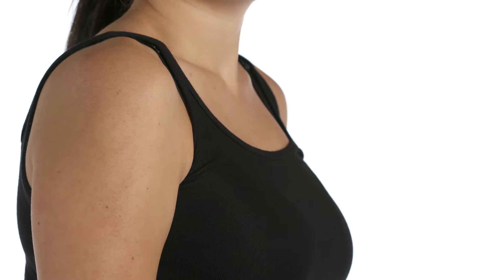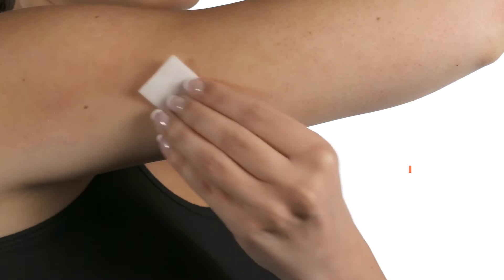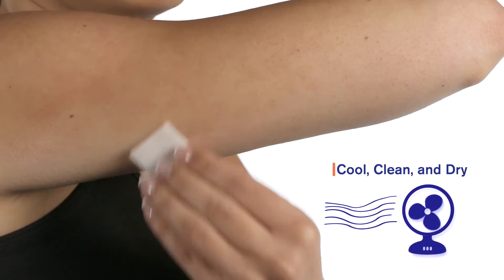To ensure proper adhesion of the pod, clean the pod placement site thoroughly with an alcohol swab. Let the skin cool and air dry completely before applying the pod.